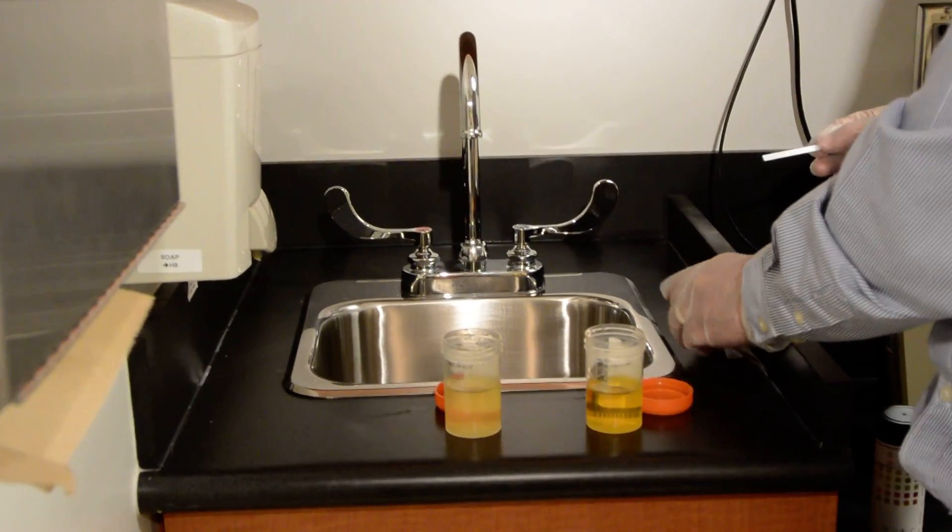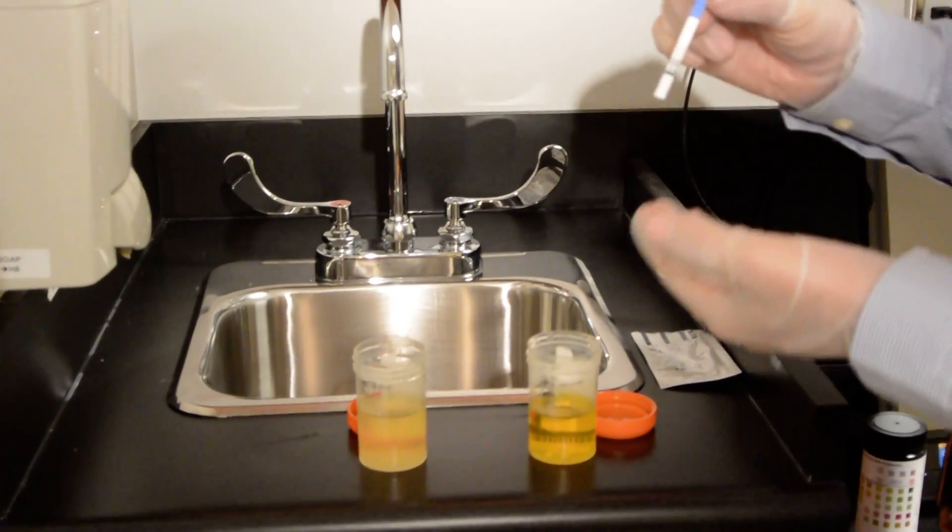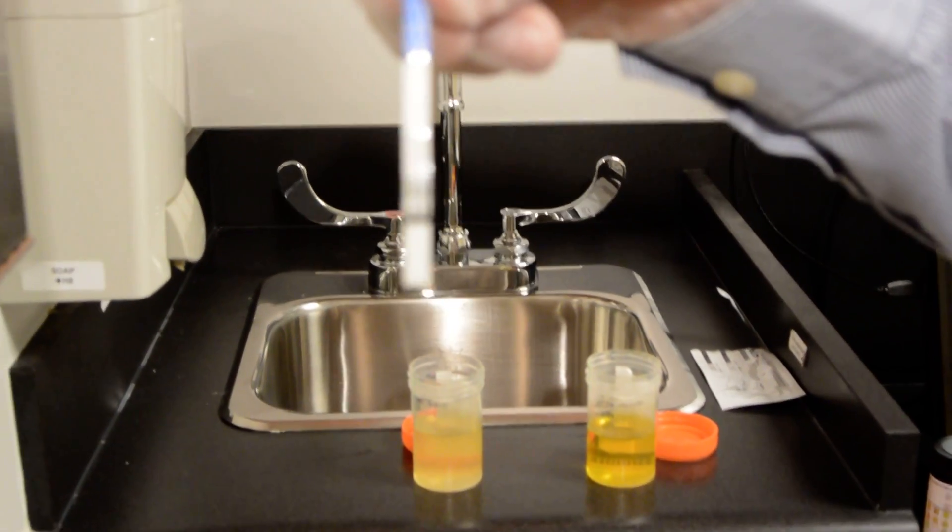So we just put the packaging aside. Let's take a look at the stick here. I hope you can see it correctly.